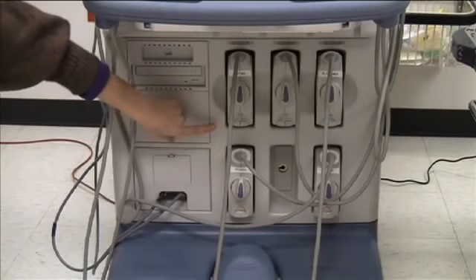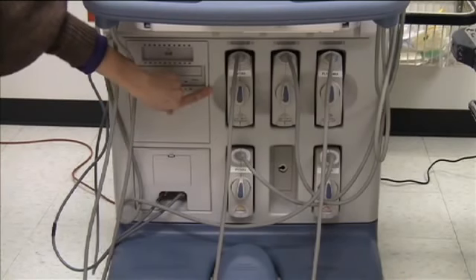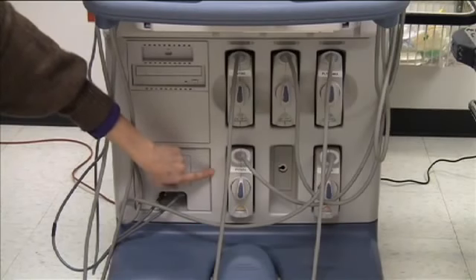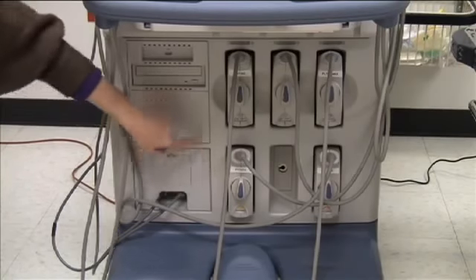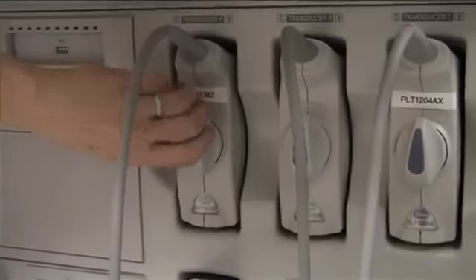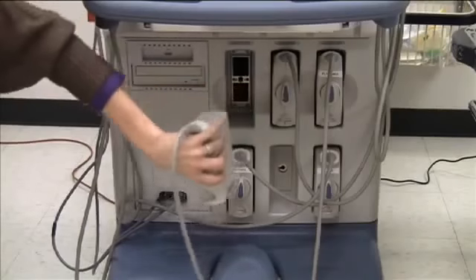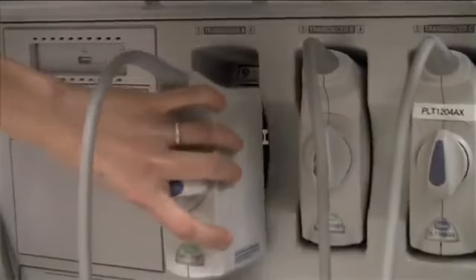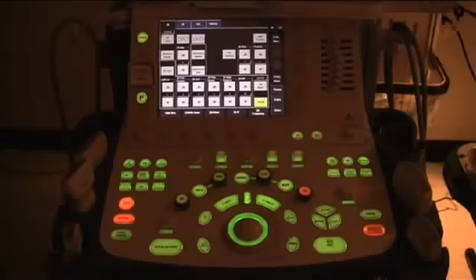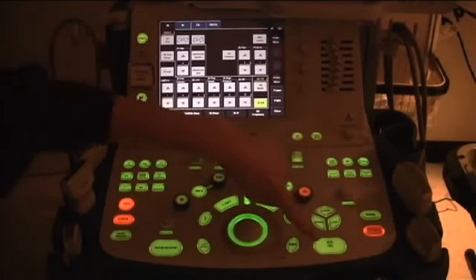Below the machine, you will find the transducer ports. The top three slots actually plug into the machine; the bottom three slots are only for holding the transducers. To change and lock in a transducer port, flip the knob horizontally to unlock it. To replace it with the one you wish to use, insert and turn the knob vertically. Before changing a transducer in the port, press the freeze button.